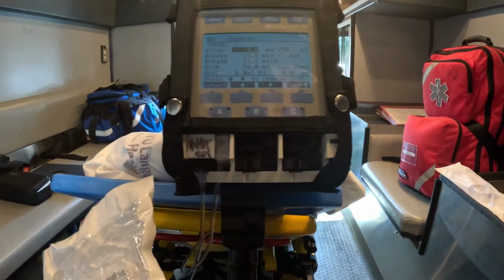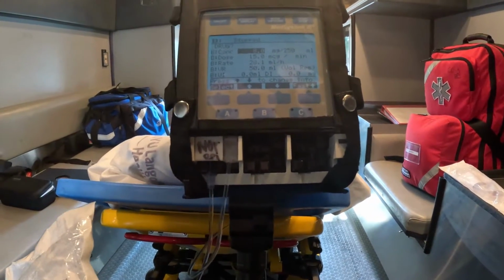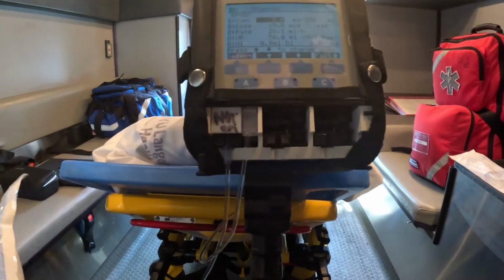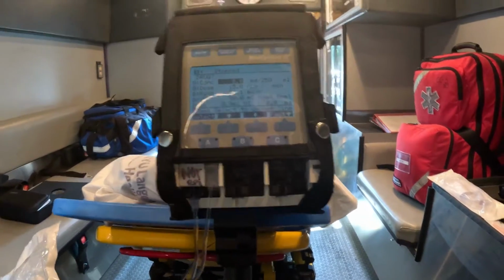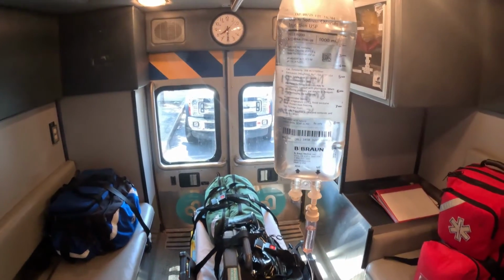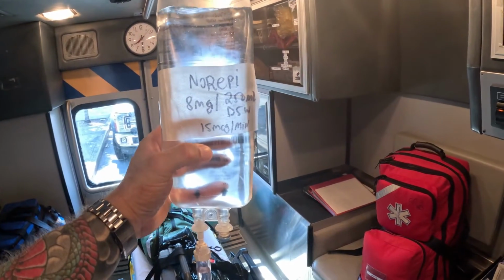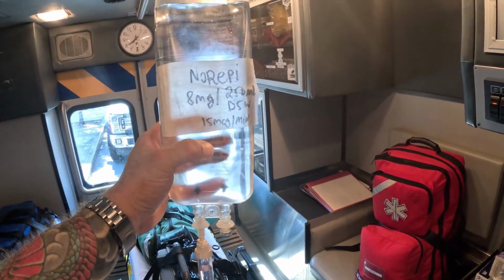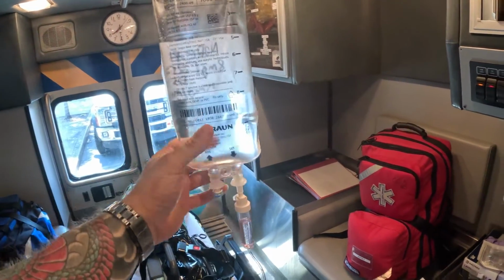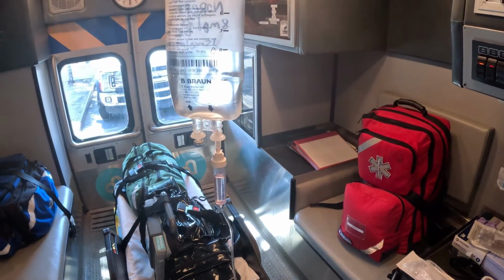I verified my 6 rights: drug, dose, documentation, patient, route and time. I verified this with the nurse, I verified with the pump, so there's no ambiguity, there's no confusion. Once we set this up, I'm going to come to the hospital pump, and let's pretend this is the hospital norepi that's hanging here. So I have this label, I verify, this is norepi, 8 milligrams in 250 D5W, it's running on the pump, and right now we're going to pretend this medicine is actually infusing into the patient.